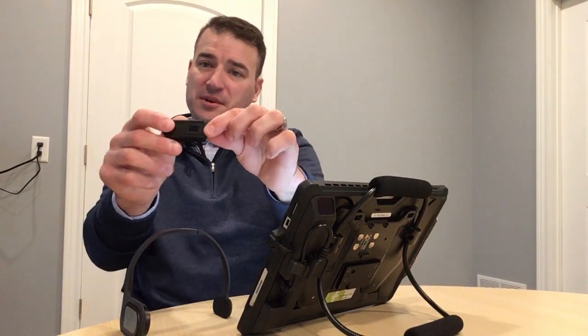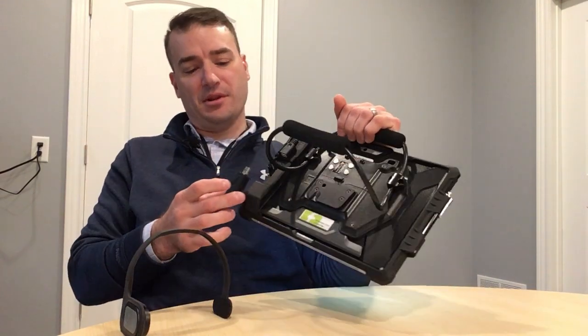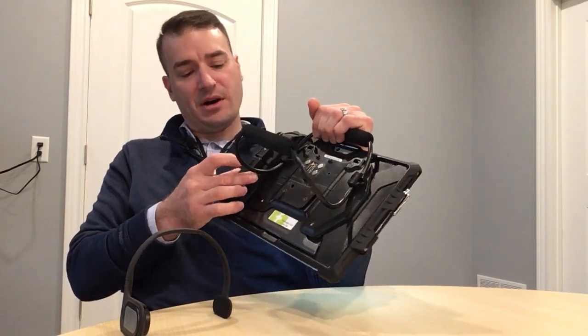The next thing I want to show you is our wireless gyro head mouse. If I have a user that maybe has a spinal cord injury and still has movement of their head and neck, I can use this wireless head mouse to move the mouse cursor around on the screen. It has a long USB dongle again, so I'm going to use my port relocator and plug into the bottom of it.